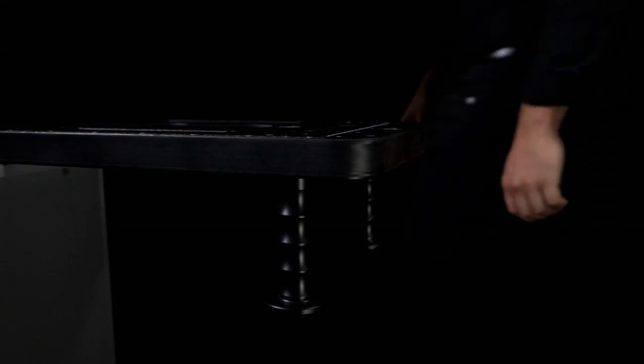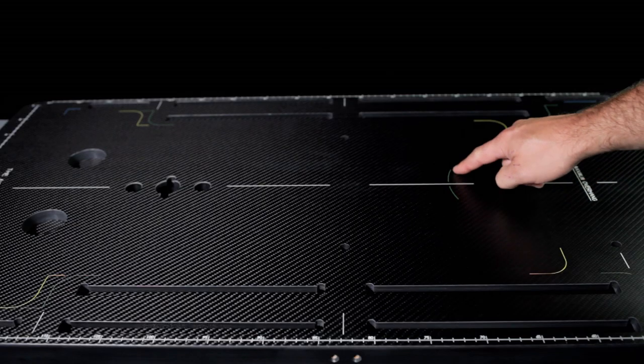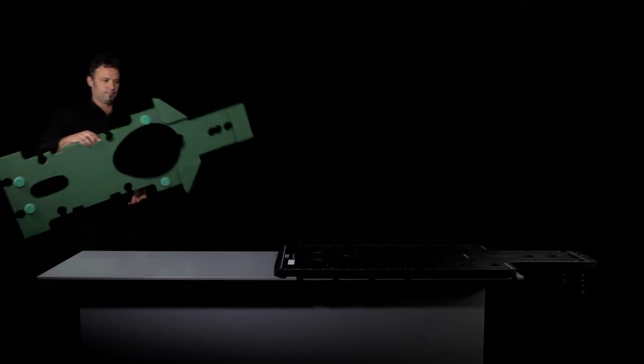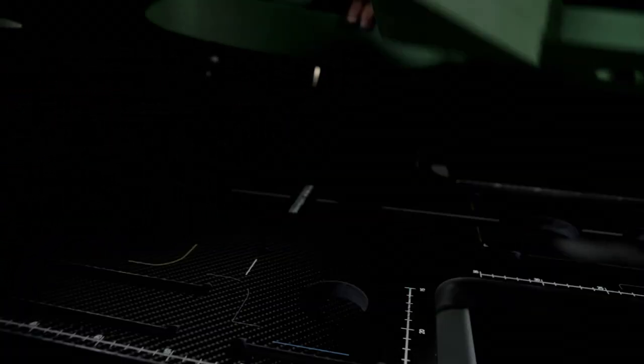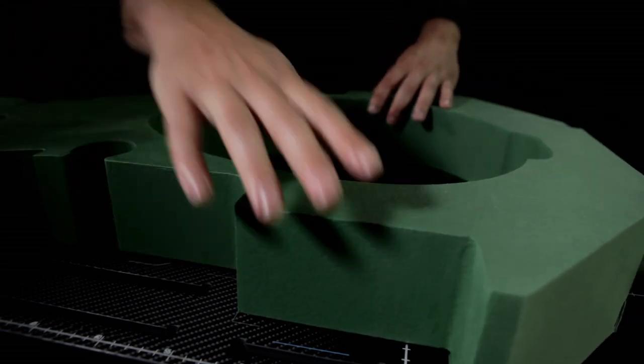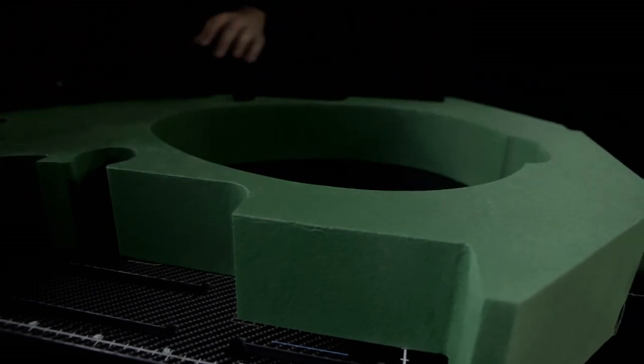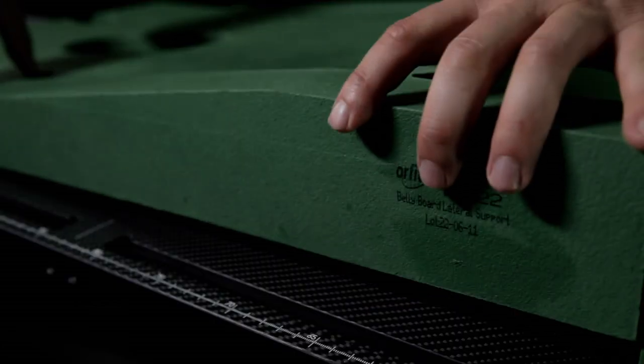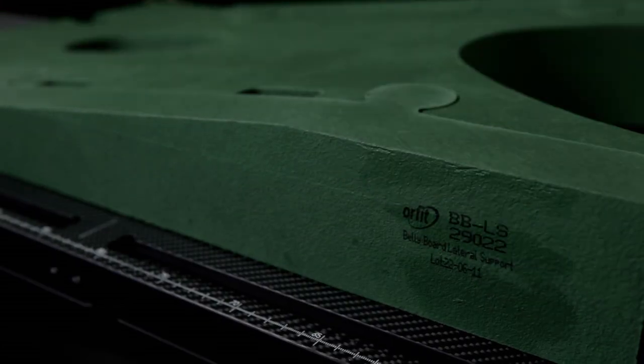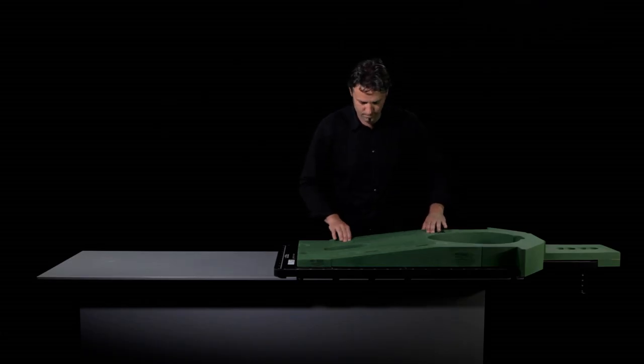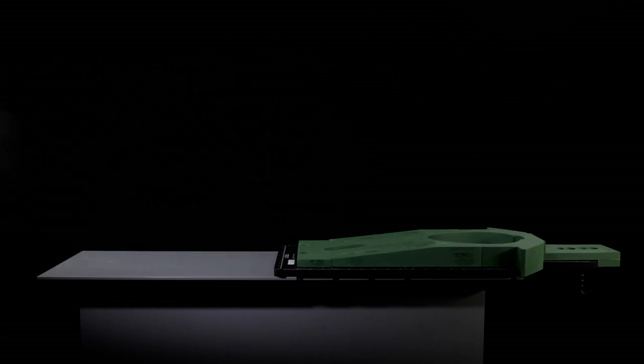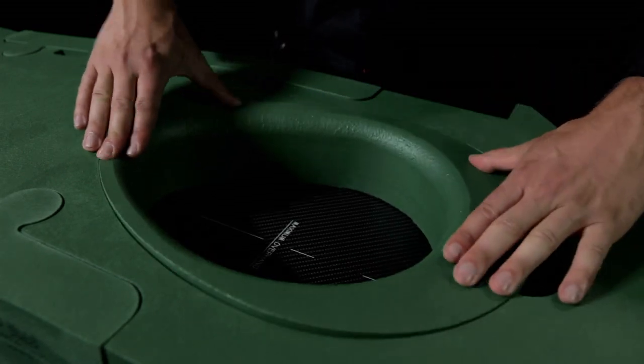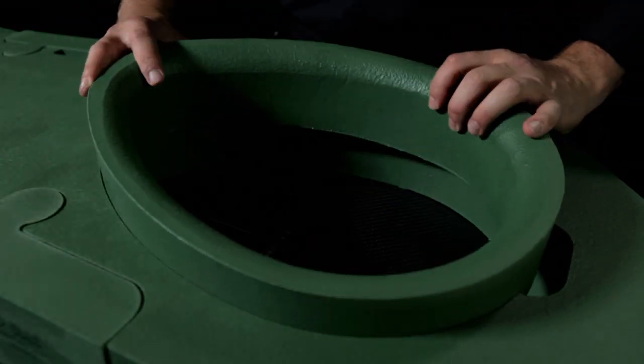Now fit the bellyboard base cushion in place. There are green lines on the AIO base plate to help position the cushion. The cushion itself has a number of bosses that fit in the holes provided in the base plate. Push the bosses firmly in so that the cushion lies flat on the base plate. The base cushion can also be widened slightly using two lateral supports if the anatomy of the patient requires so. The large hole in the cushion can then be adjusted using one of three possible inserts. Which insert you use again depends on the patient's anatomy.